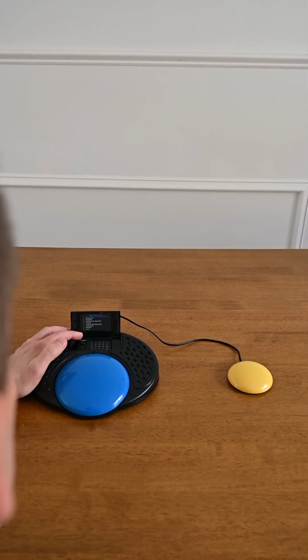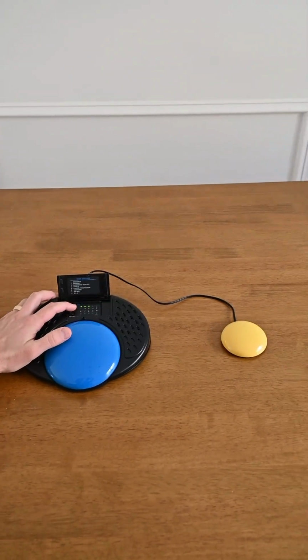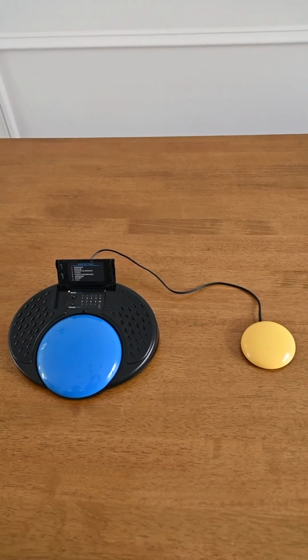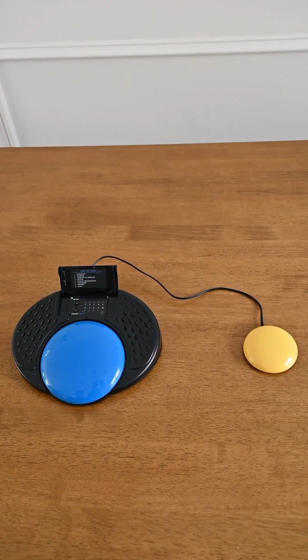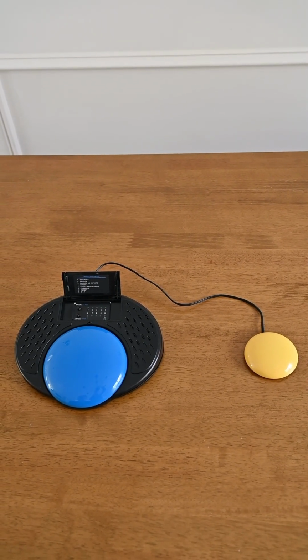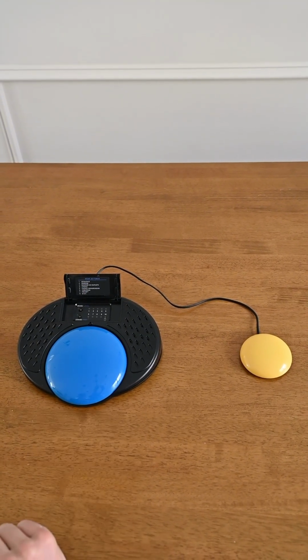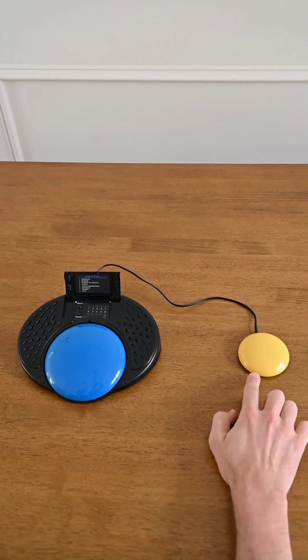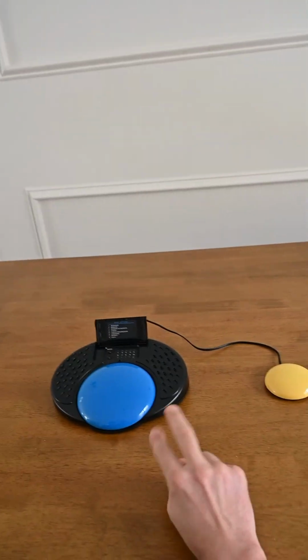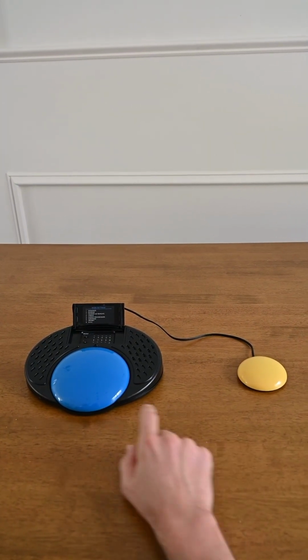Okay, so the next mode is converse mode, and I have messages recorded on level 4 for converse mode. So I'll jump over to level 4 to get to those messages. Level 4, converse. And converse mode is great for teaching users to take turns in a conversation. So this switch plays the messages for one person, and this switch plays messages for the other person. But the Smooth Talker won't let you go out of turn, so you have to play your messages in order.